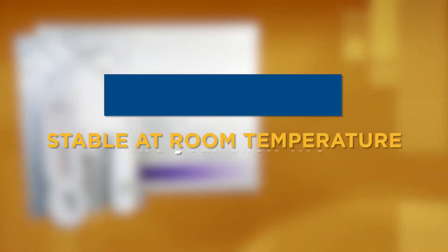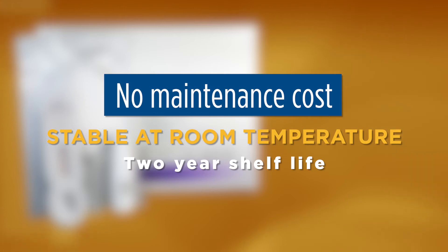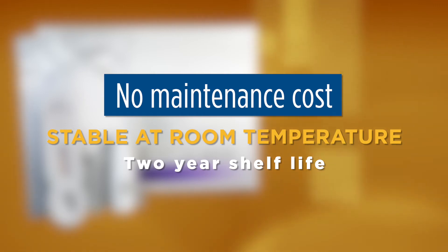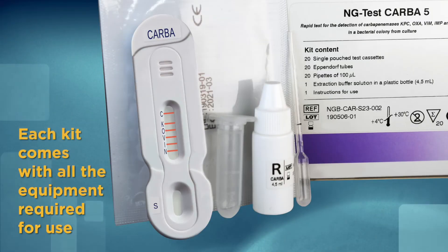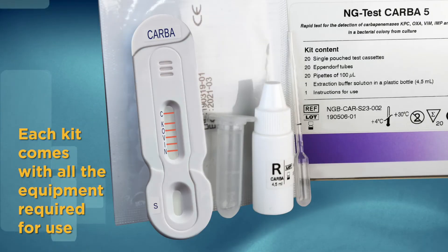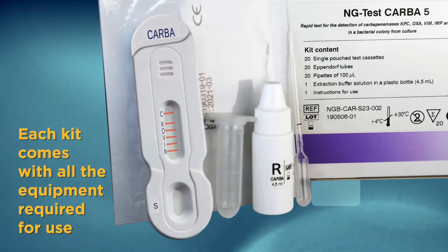There are no maintenance costs associated with the device, and the product is stable at room temperature with a two-year shelf life. Each kit of NG-Test CARBA-5 comes with all the equipment required for use.